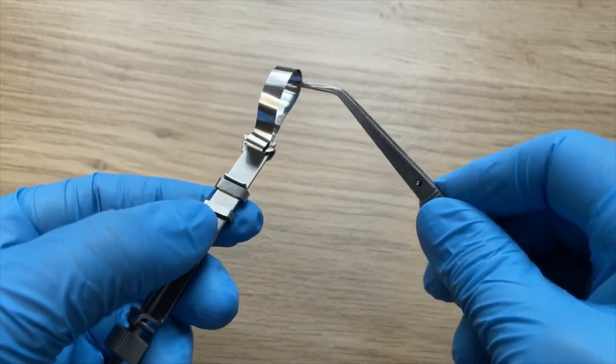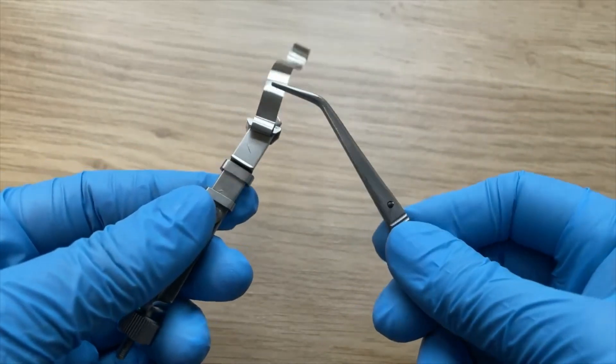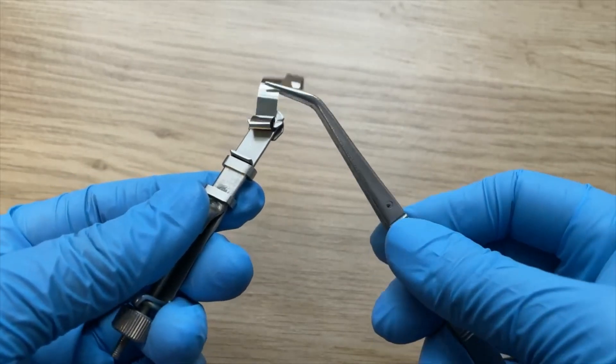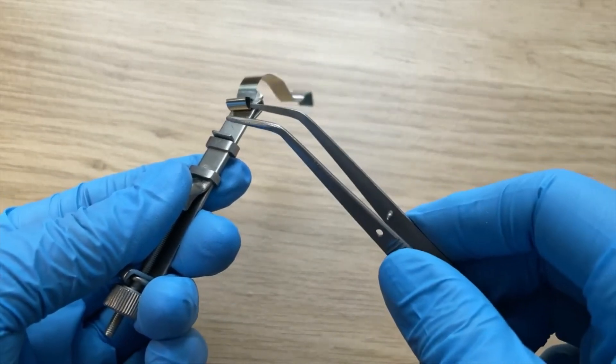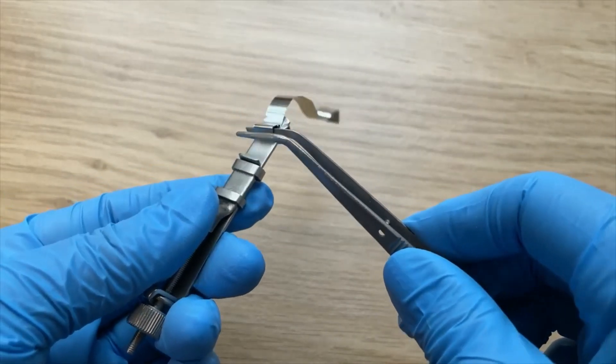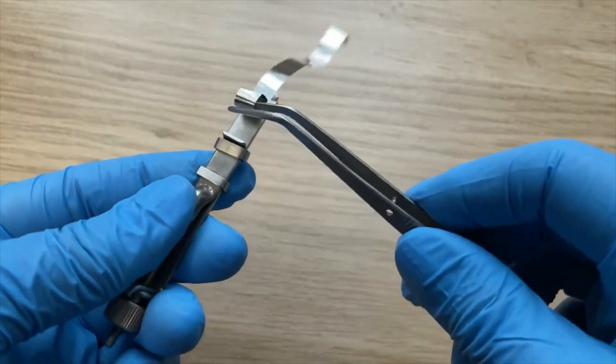Pull it up again with your tweezer. Like that. Insert your tweezer in between. Pull.